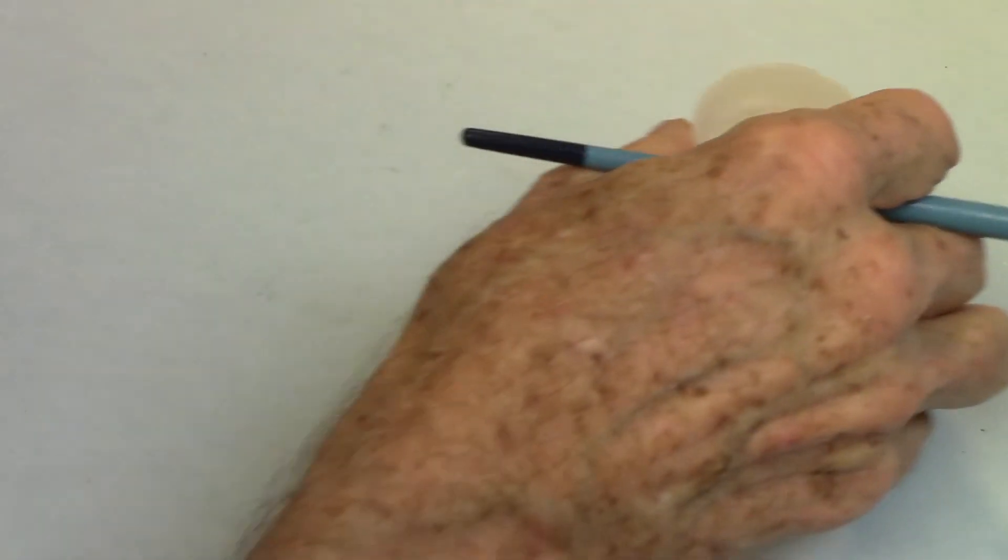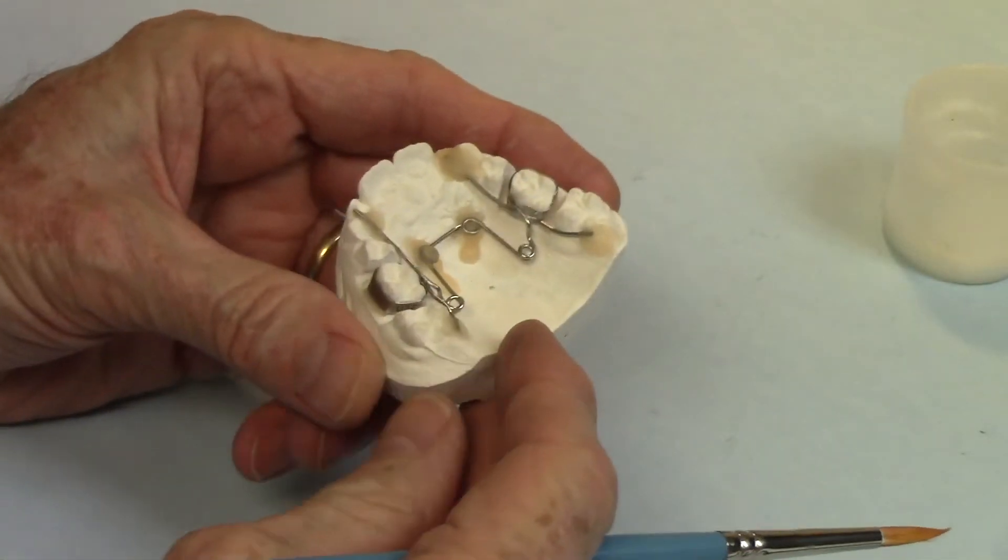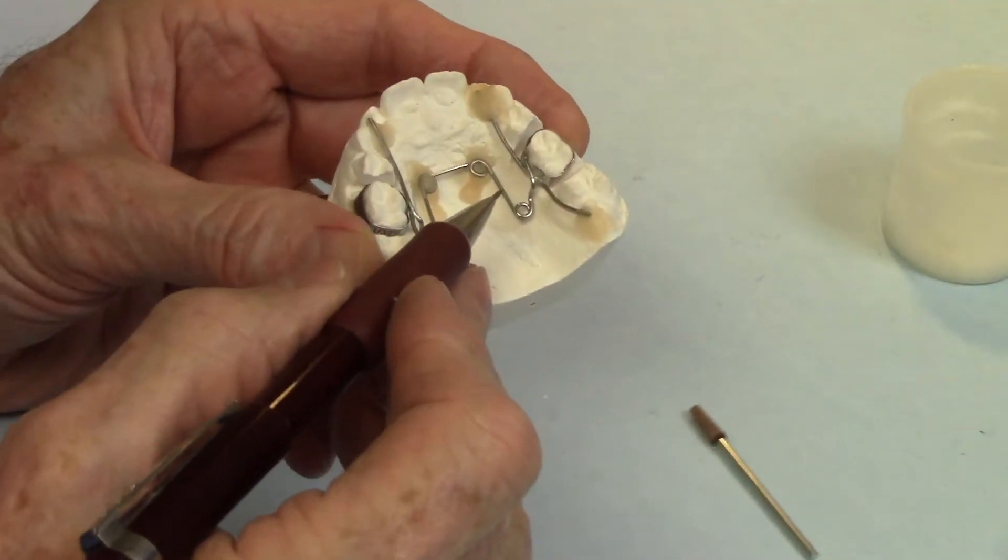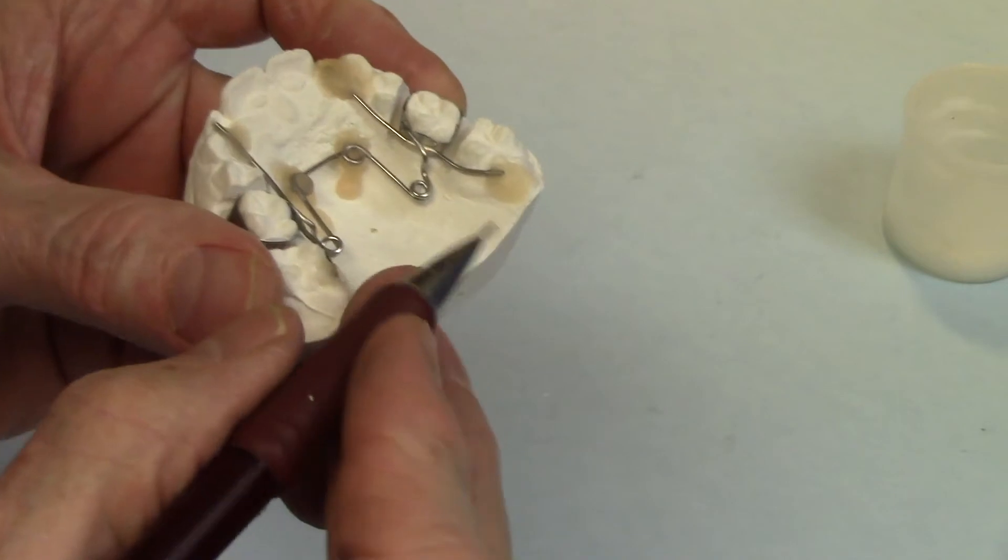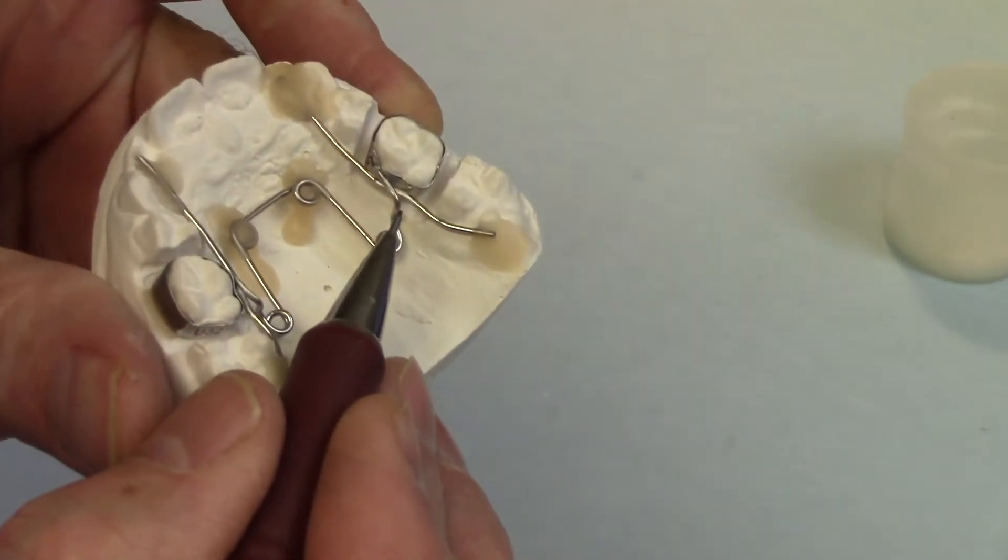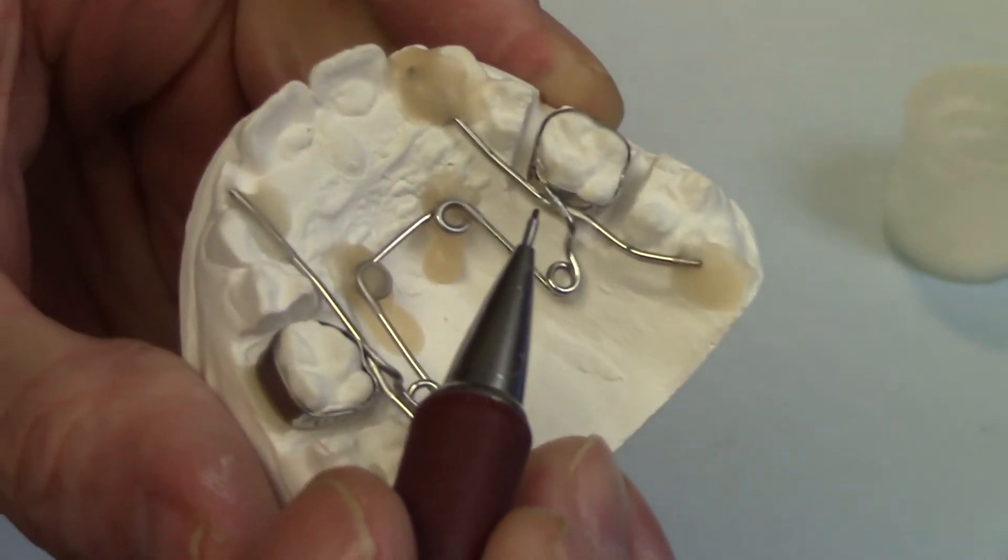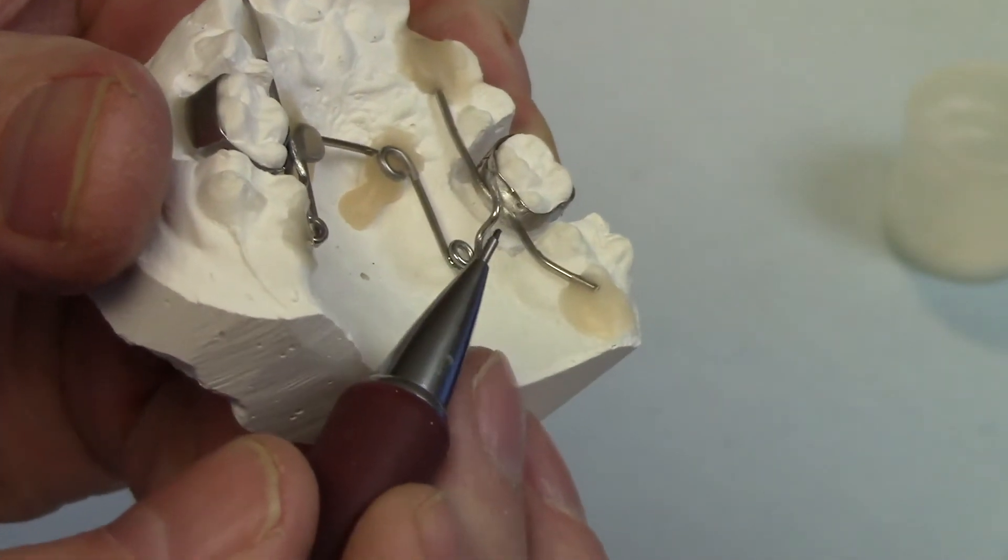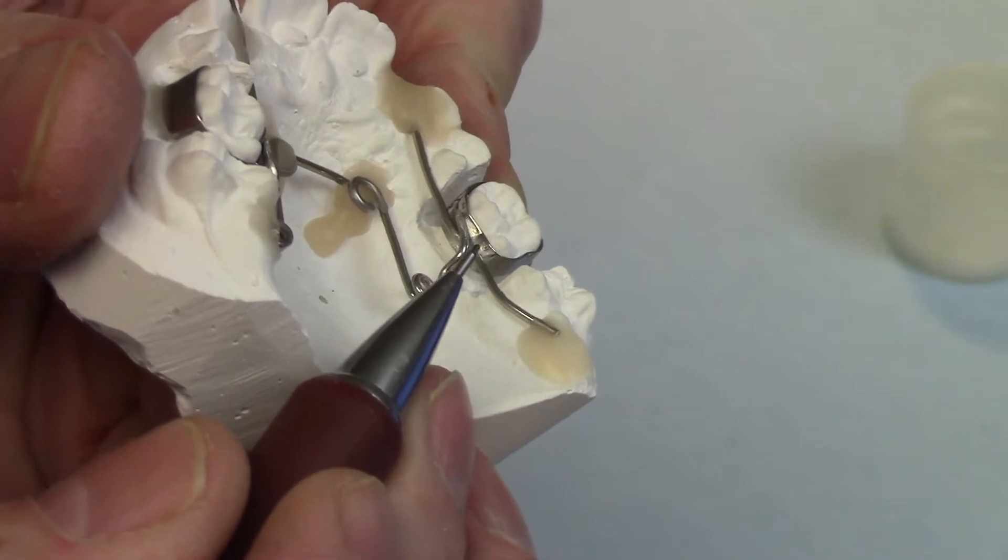All right. Now the wires. How do we prepare the wires? Okay, the wires, you'll notice they're roughened up. They don't have a smooth, shiny surface. They're kind of rough. Let's get in there even closer. And the band material is roughened up. It's not shiny.